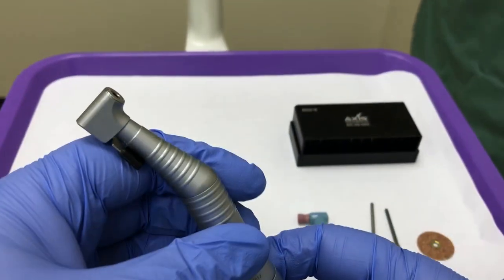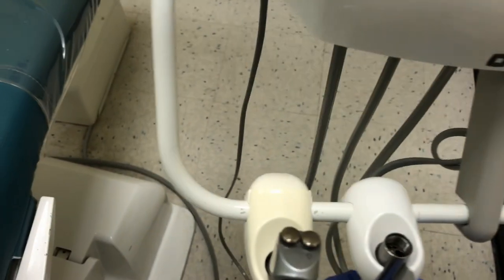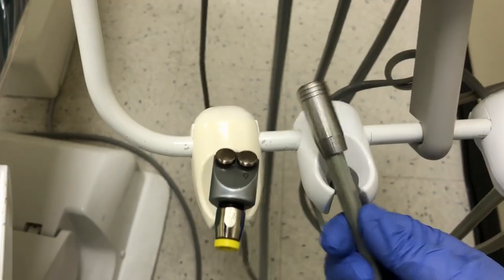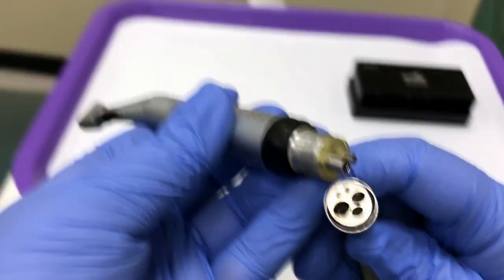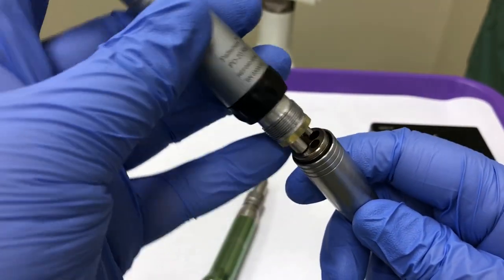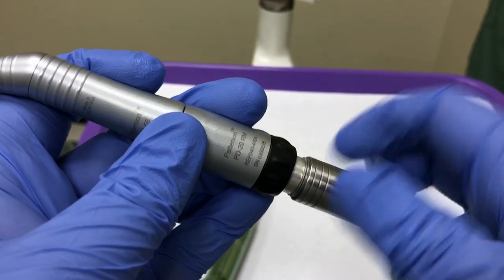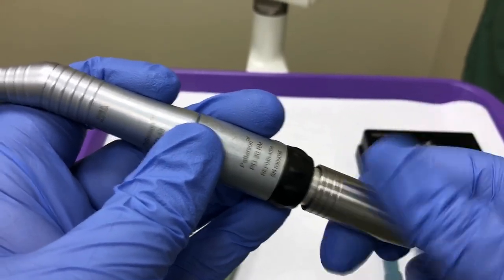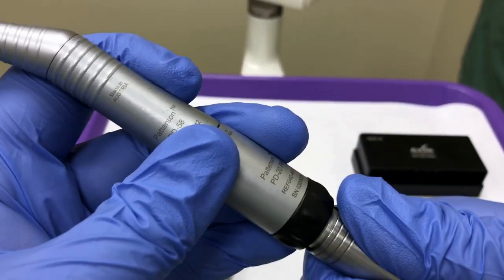Select another handpiece coupler and attach the motor to the tubing. Again, there is only one way for the tubes to line up properly. Secure the handpiece to the tubing and select the appropriate burr called out by the instructor.